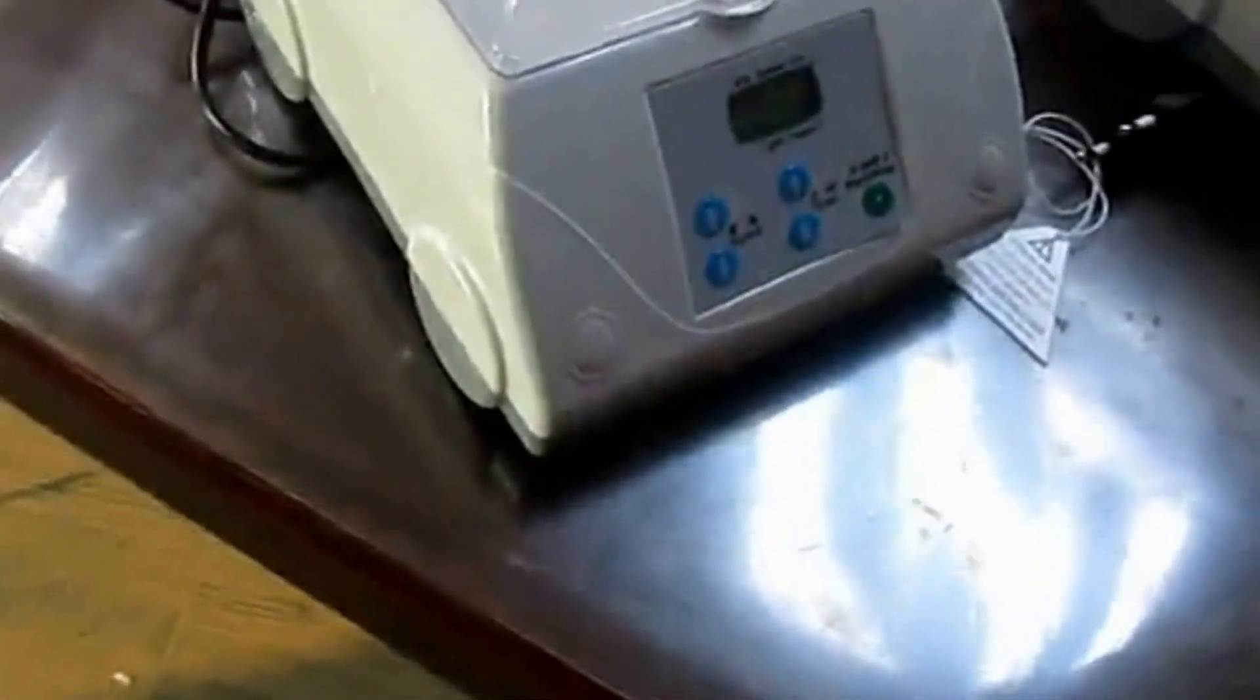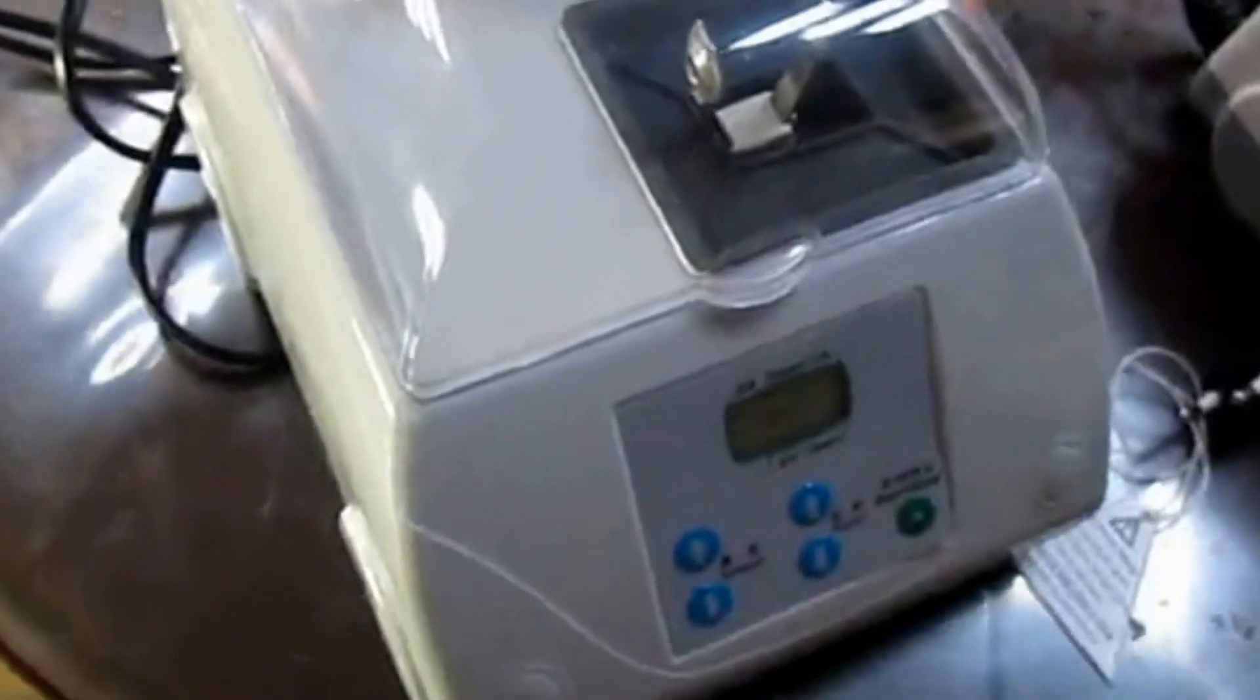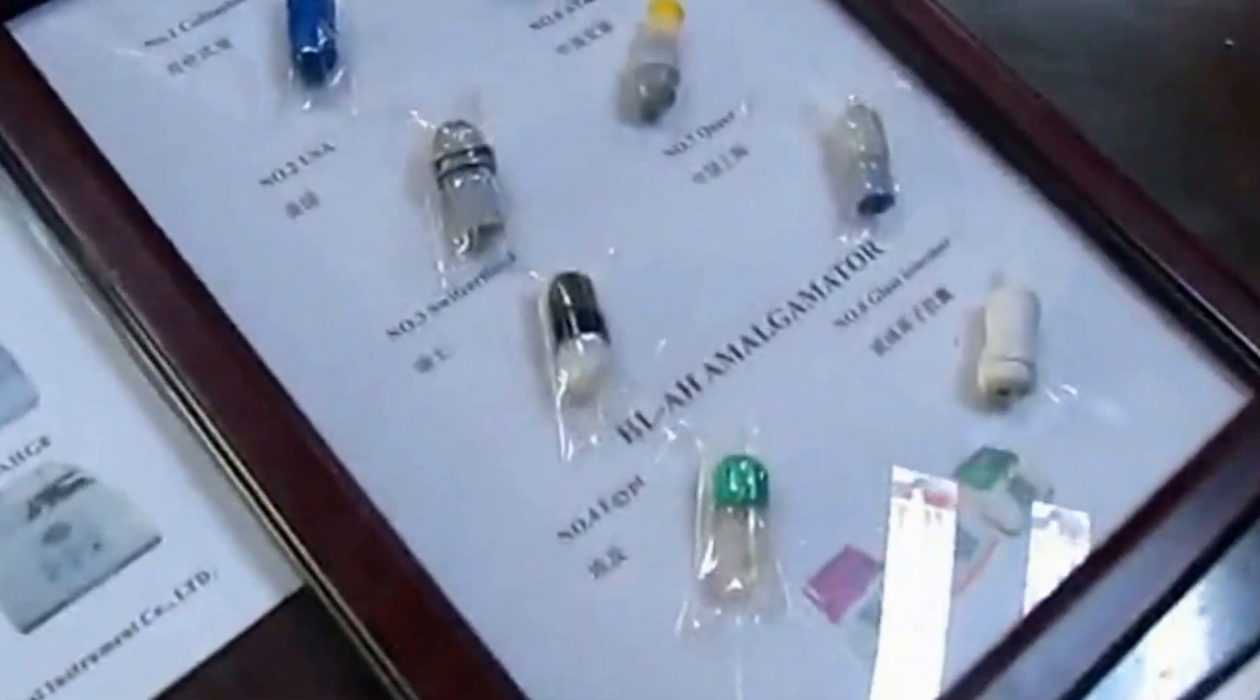Our amalgamators can mix not only amalgam capsules but also glass ionomer capsules.